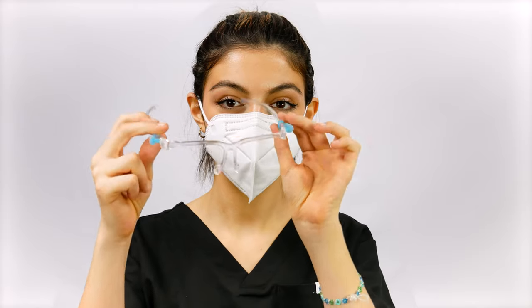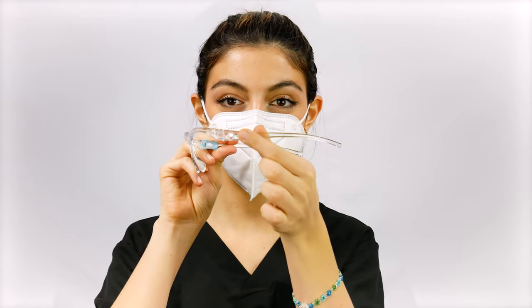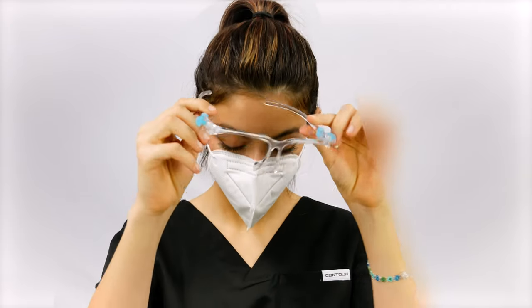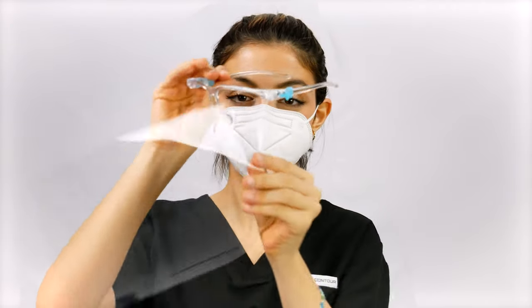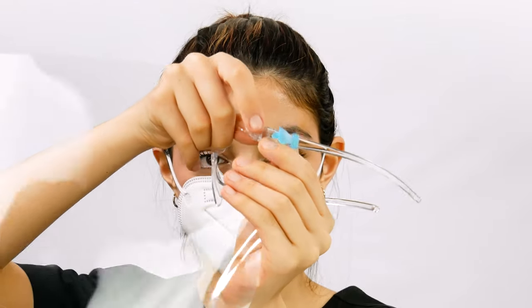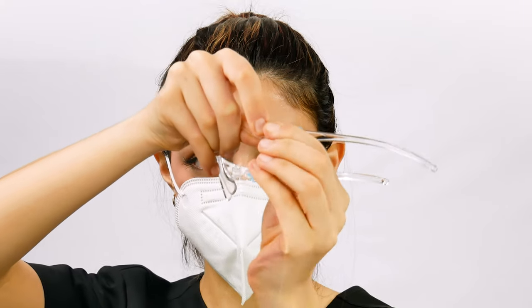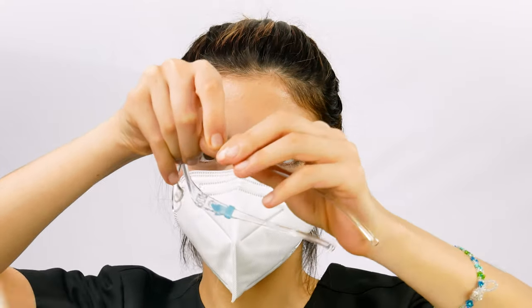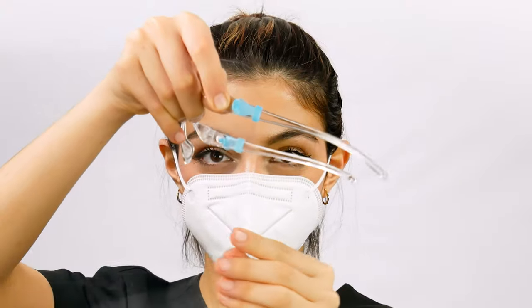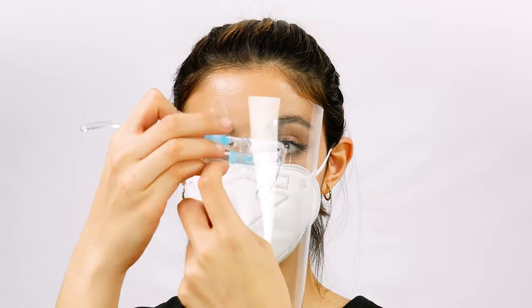Open the glasses and notice the plugs on both sides. Ensure the plugs are pulled out on each side of the glasses. Align one of the holes on the shield with the appropriate hole on one side of the glasses, like so. Insert the plug to secure the frame of the glasses to the shield. Rotate the glasses and repeat the same for the hole on the other side of the shield and glasses.